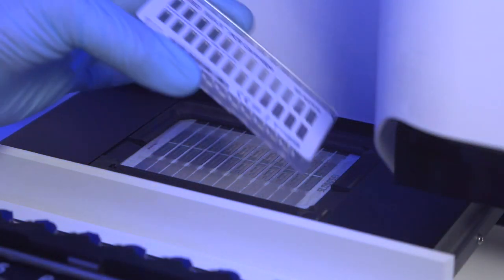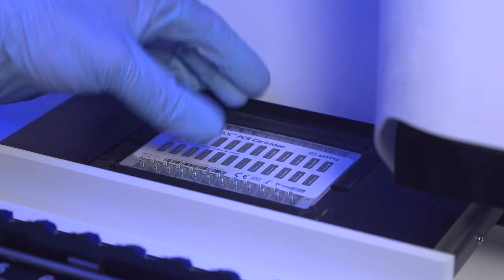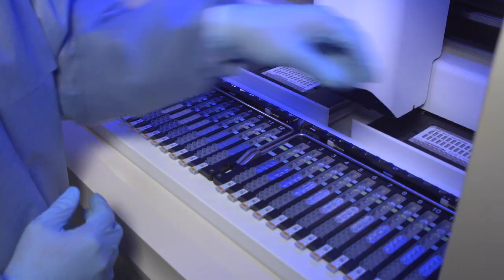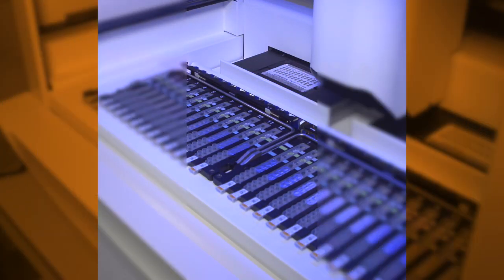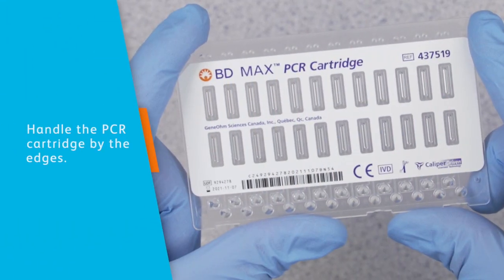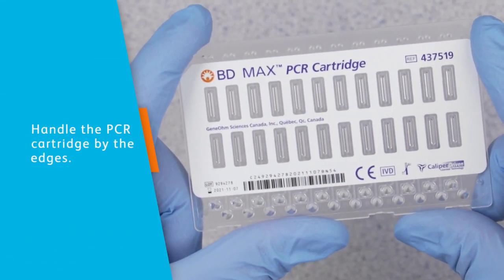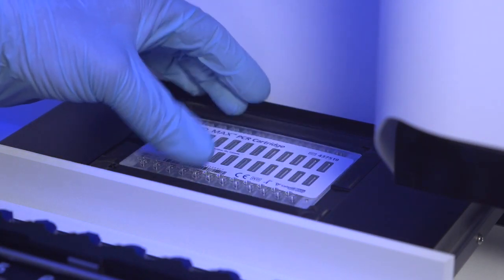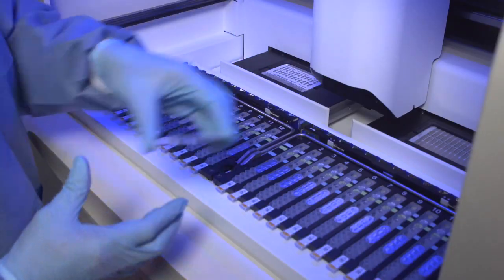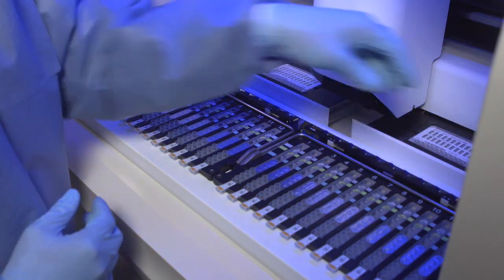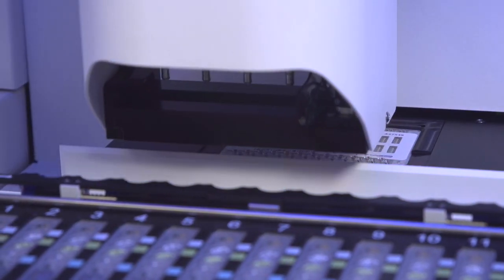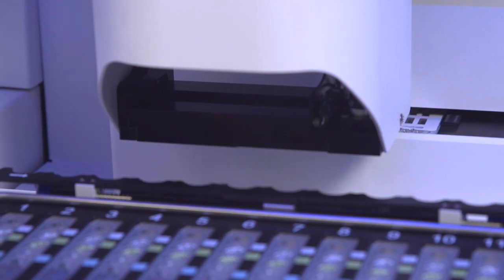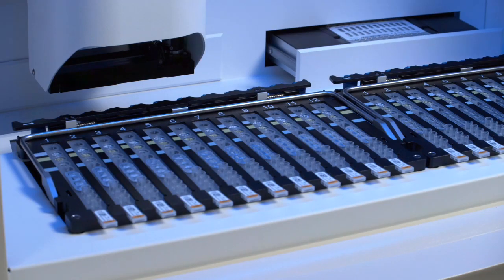Place the required number of BDMAX PCR cartridge or cartridges into the BDMAX System. Each rack needs one PCR cartridge to complete a run. Handle the PCR cartridge only by the edges to ensure that dirt or debris does not interfere with processing. Position the notched edge into the upper left corner of the drawer. Make sure the PCR cartridge is positioned correctly and fits snugly on the drawer. Remember, the drawer closes automatically. Don't try to close the PCR cartridge drawer manually.